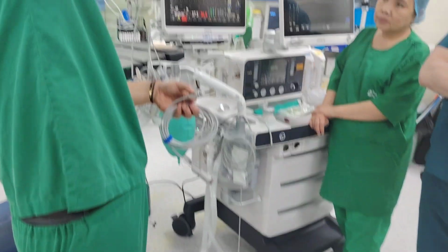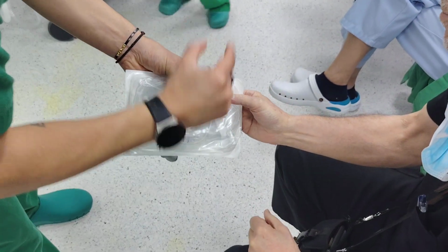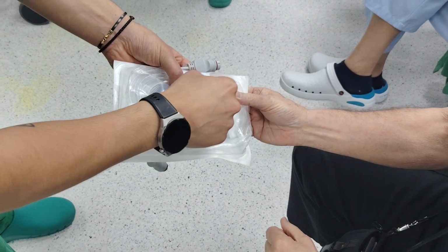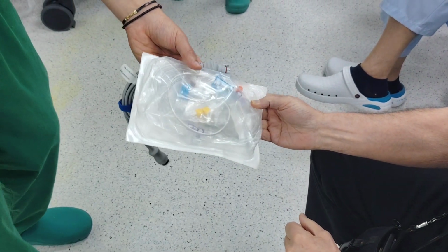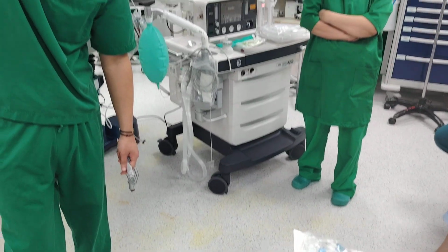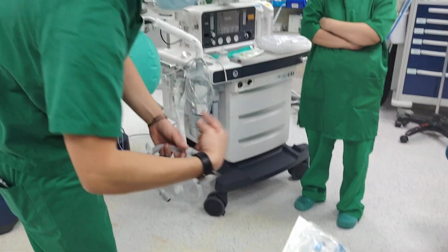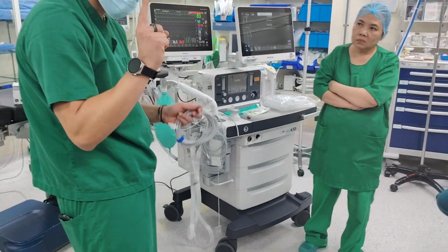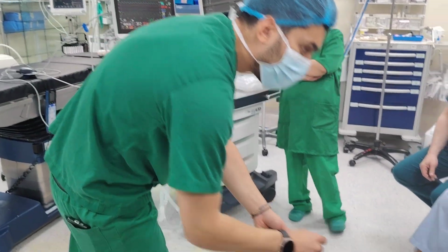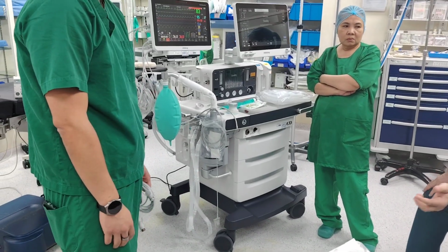Then everything is the same. You need to inflate the bag, okay? The transducer, which is a sensor for the pressure, which is taken from this section. That's what I'm saying. Sometimes they sell you only this. And then you put a normal Luer lock, a normal IV, it can, but here, there's no way to actually read the pressure without this. Of course, especially if the patient is in ICU and needs continuous reading.